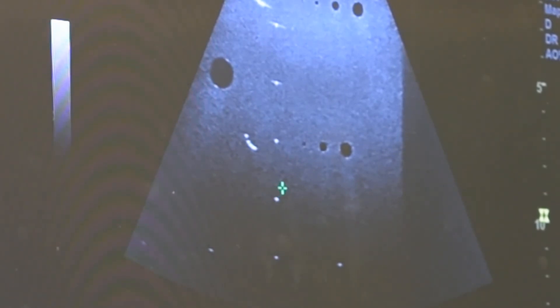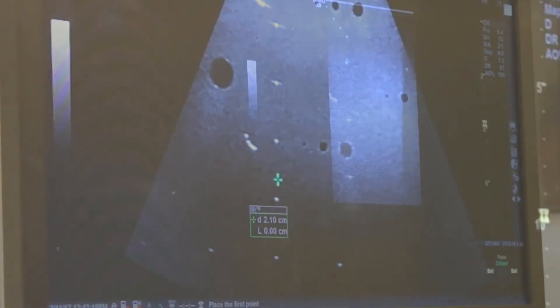We're not looking at the line targets. We're looking at these background echo signals. This happens to be about 9.4 centimeters or so. We can't see the scale setting on this particular image, but it's right around 9.4 centimeters for our maximum depth penetration.